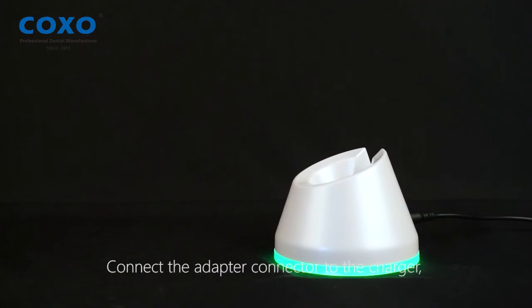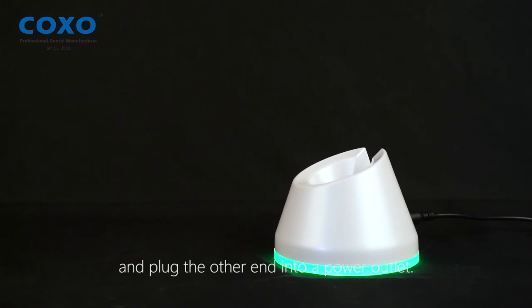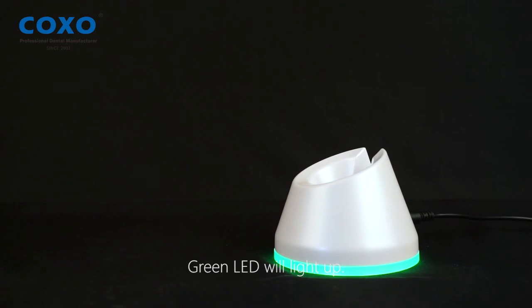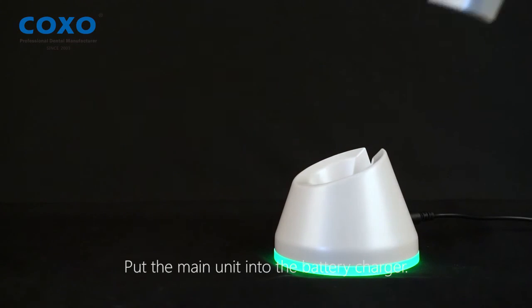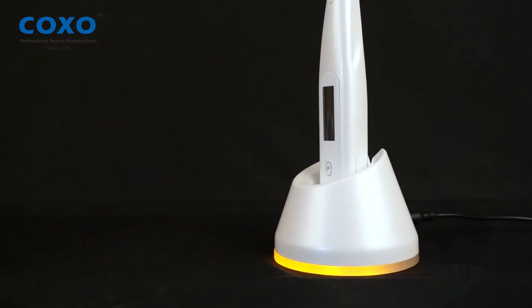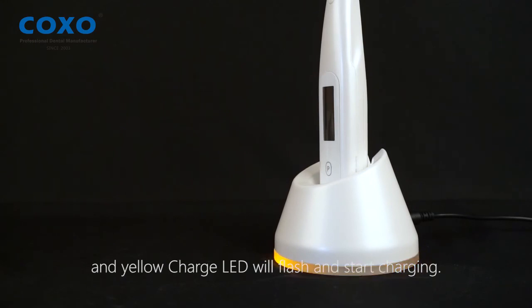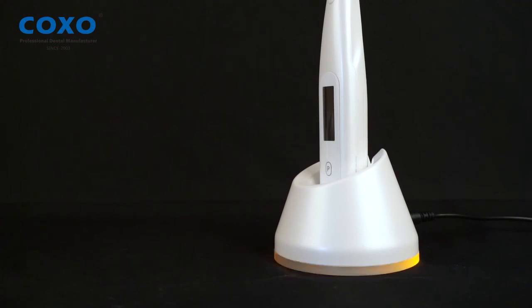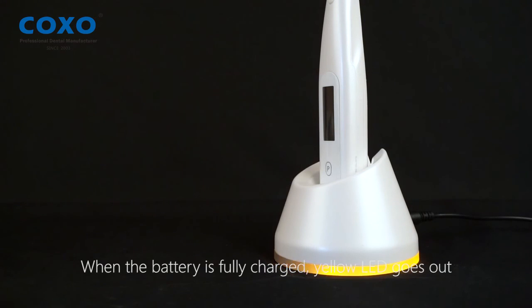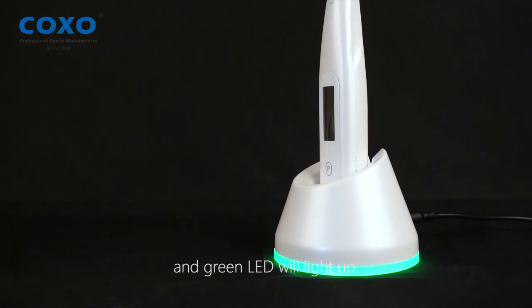Charging. Connect the adapter connector to the charger and plug the other end into a power outlet. The green LED will light up. Place the main unit in the battery charger — the green LED will go out and the yellow LED will flash, indicating charging has started. When the battery is fully charged, the yellow LED goes out and the green LED lights up.